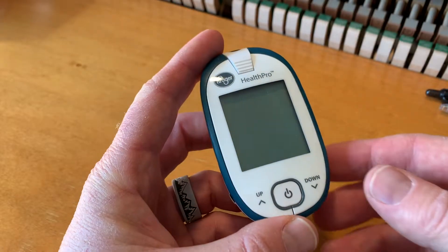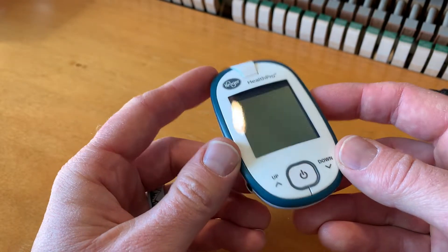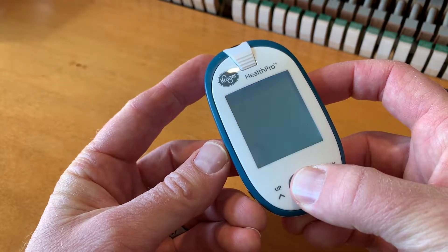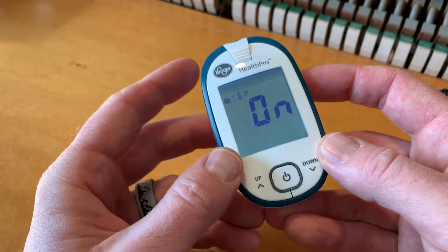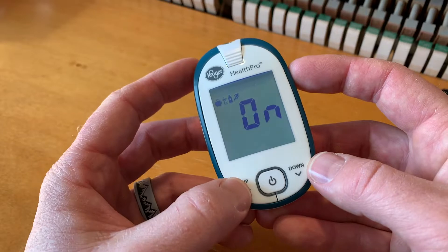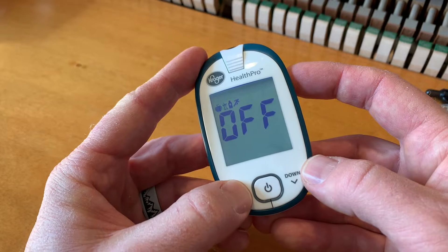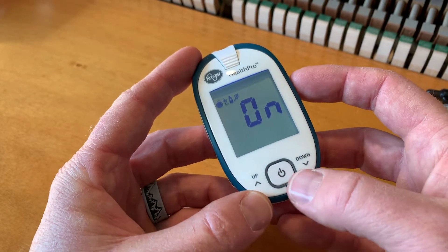To begin the setup process for our Health Pro Glucose Monitor, what we're going to need to do is first hold down the power button for three seconds. You can see it turns on. We want to go into the user mode, so we can use one of the arrows here and either go into on or off. We want to be in the on mode, meaning we can manipulate the user input data.